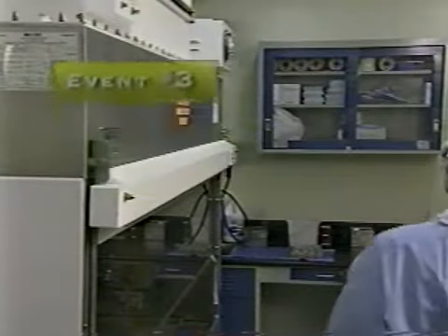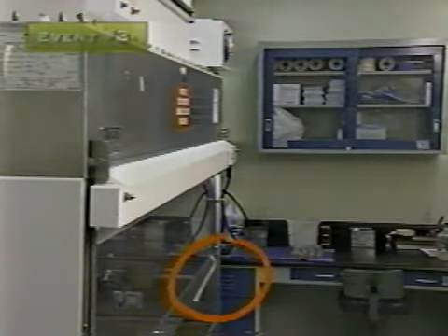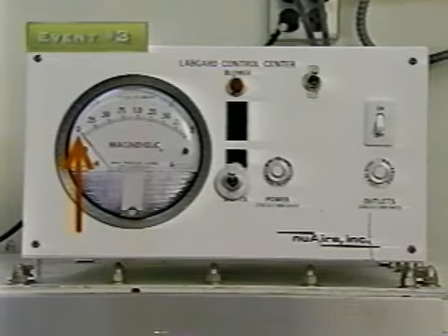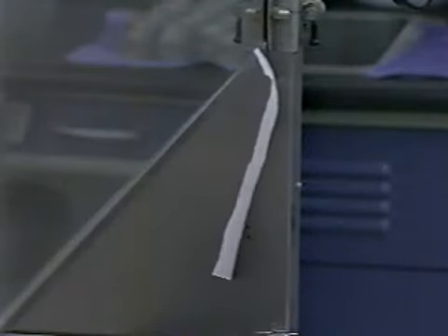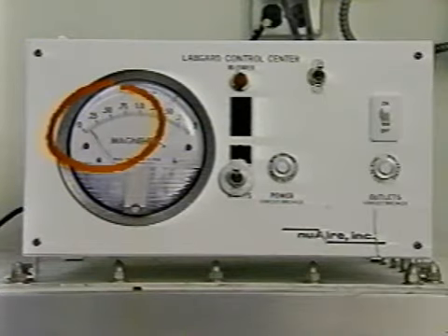Do you remember this scene from the observation exercise? The airflow on the Biological Safety Cabinet, or BSC, is not drawing inward. The flutter strip is not moving, and the magnehelic gauge reads 0. Not only should that paper strip flutter into the cabinet, indicating flow away from the worker, but the cabinet's magnehelic gauge should register at the expected level.